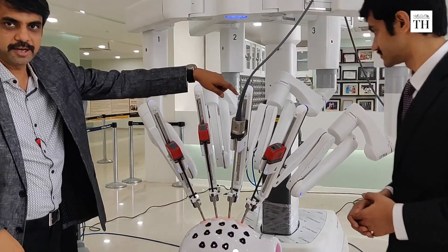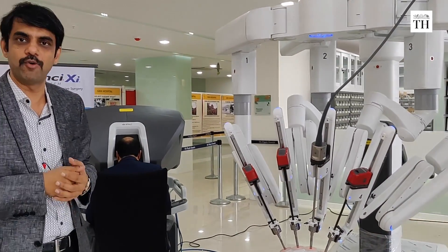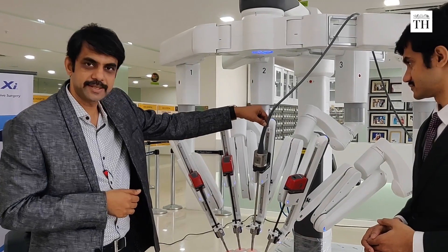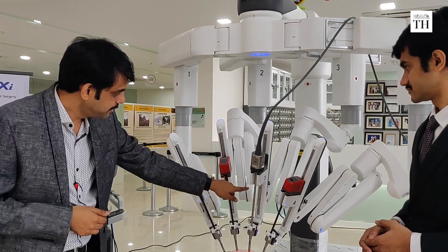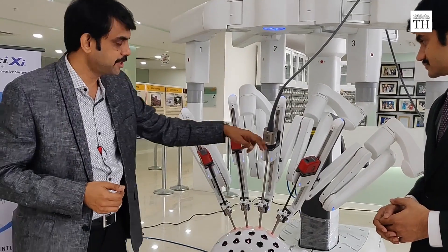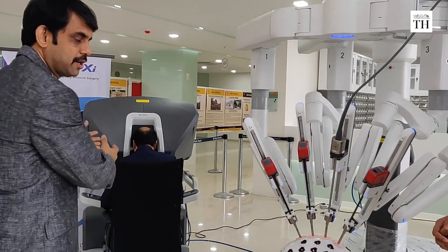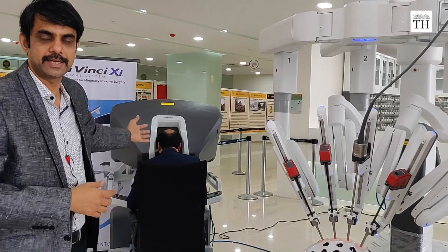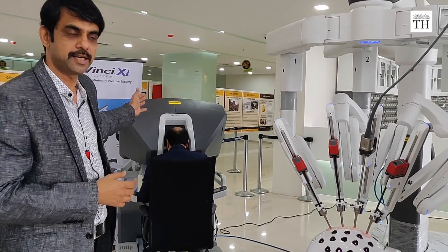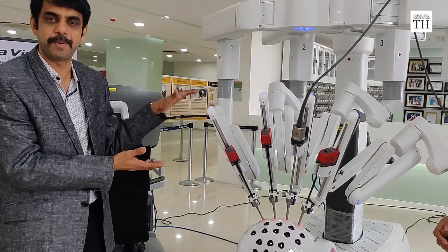The robot consists of four arms. Like we humans have two arms, the robot has four arms. One of the arms contains the camera system, which shows what's happening inside. The rest of the three arms perform the surgical task and basically replicate the task the surgeon performs at the surgeon's console. This is an important component — the patient cart.